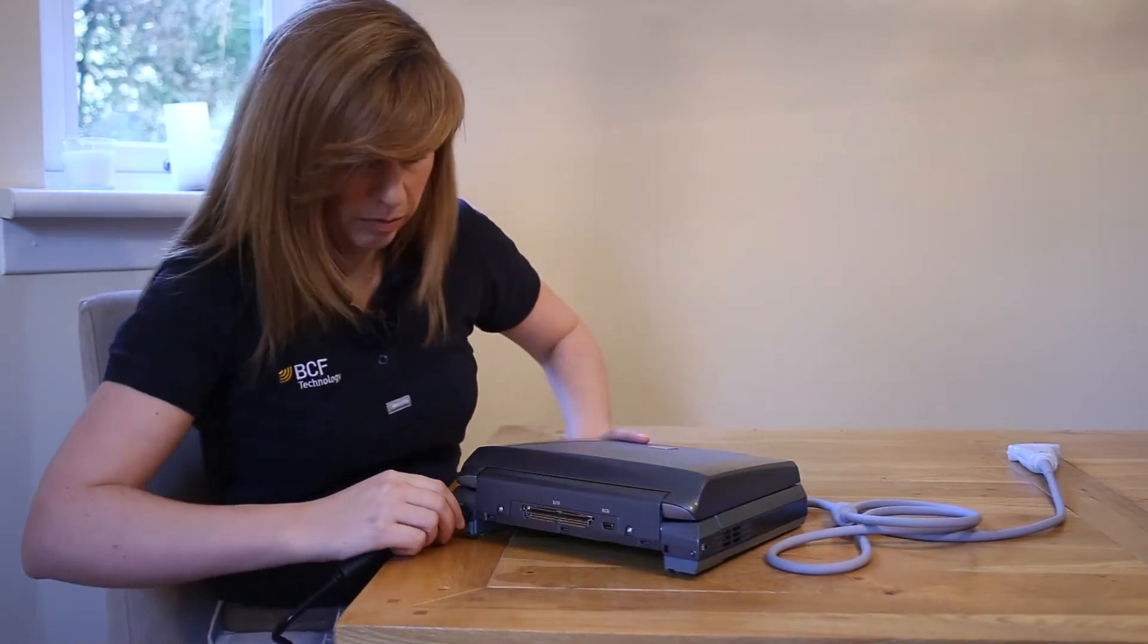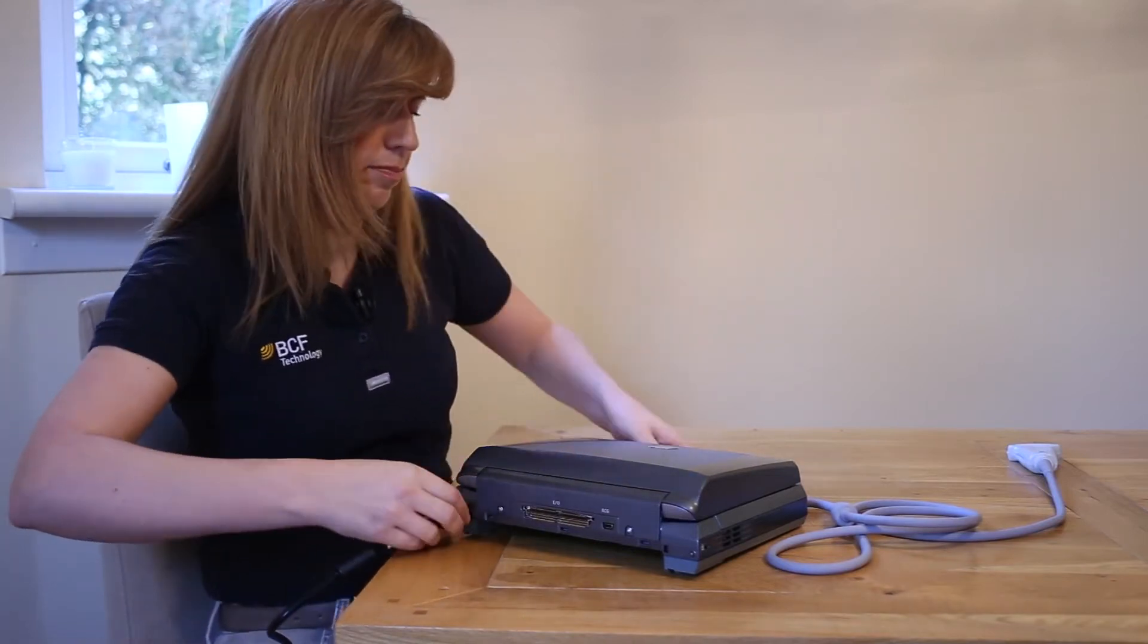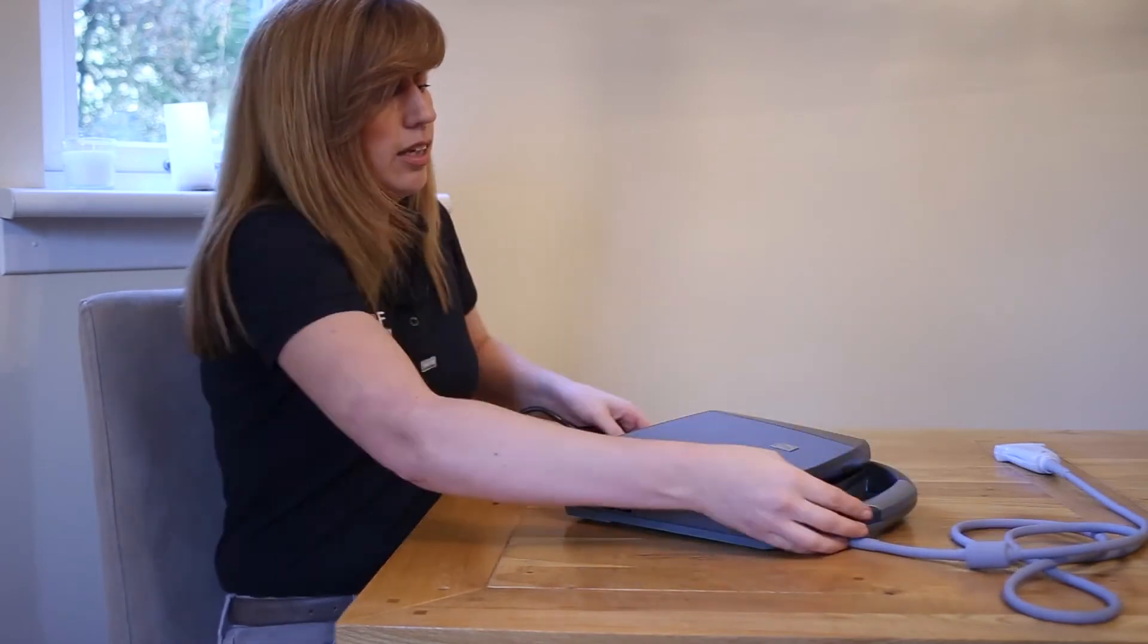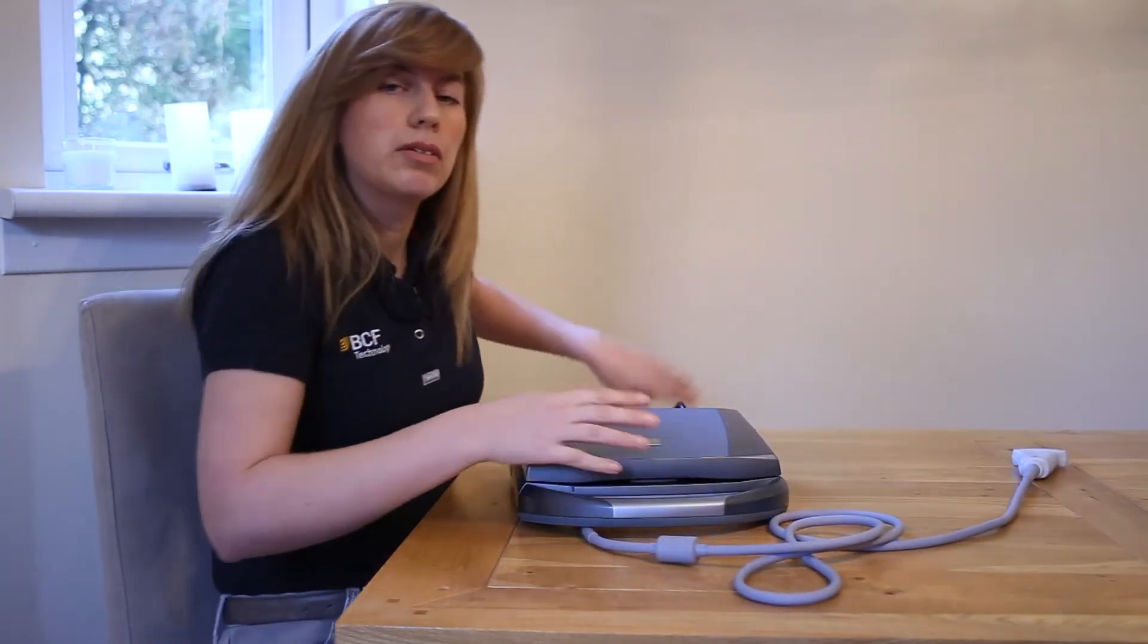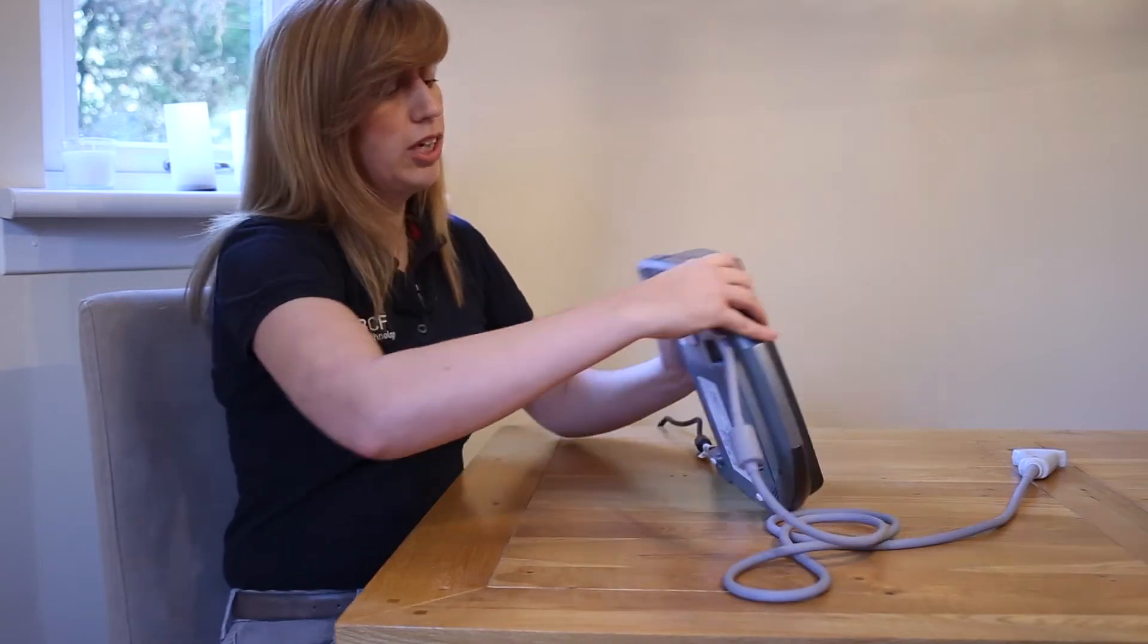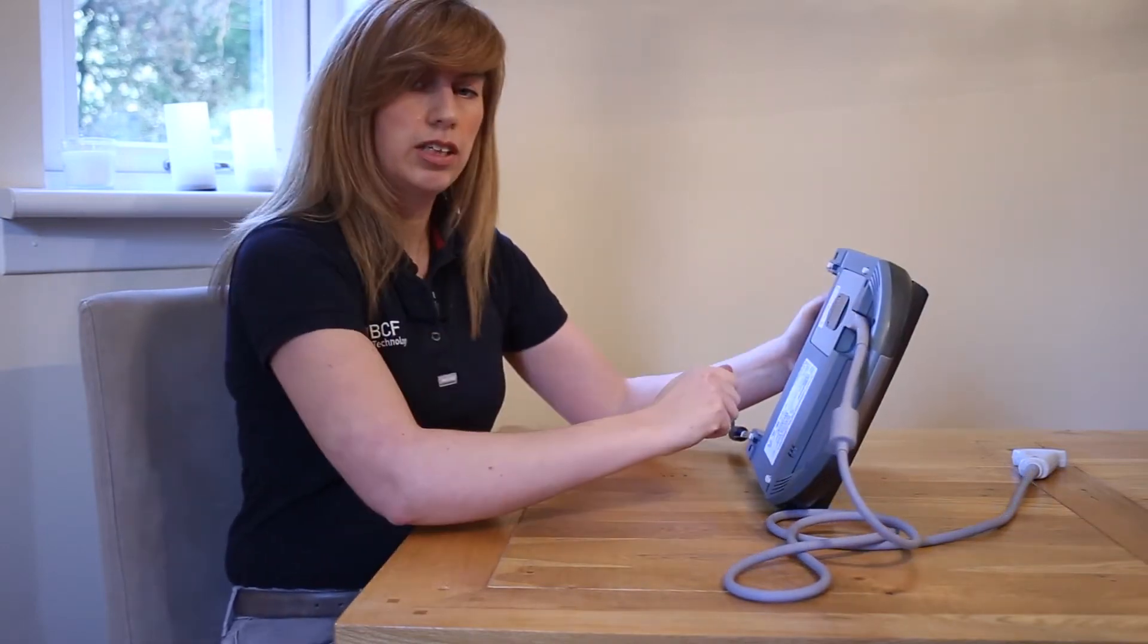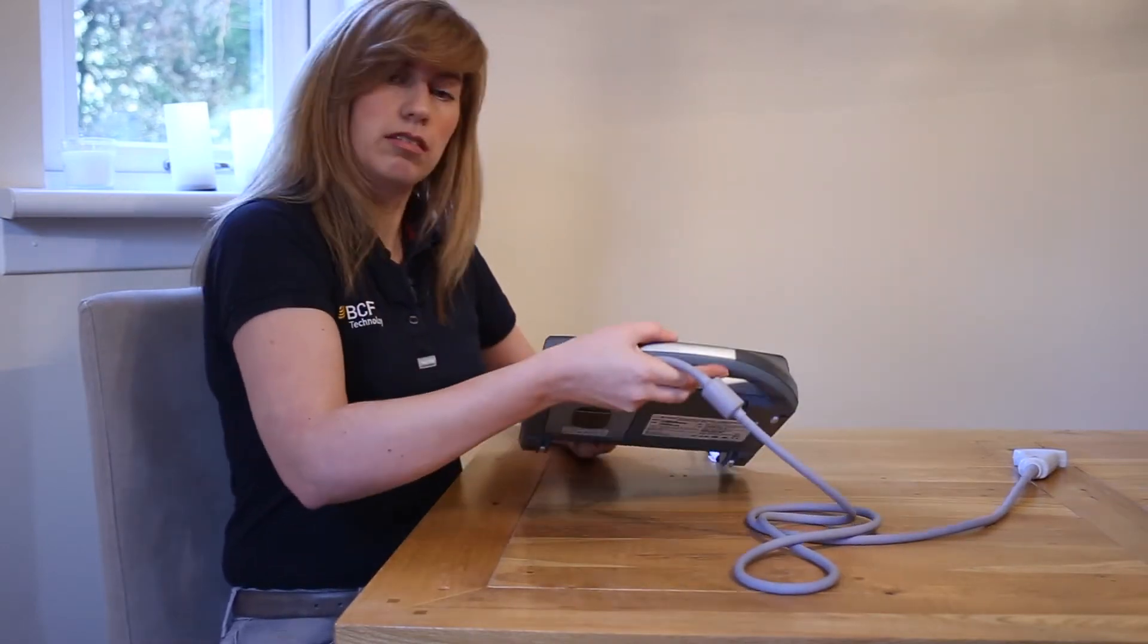If you've already attached your power supply before attaching your probe, try to twist the machine onto its side to attach the probe rather than levering it back. This will avoid damage to the power supply.